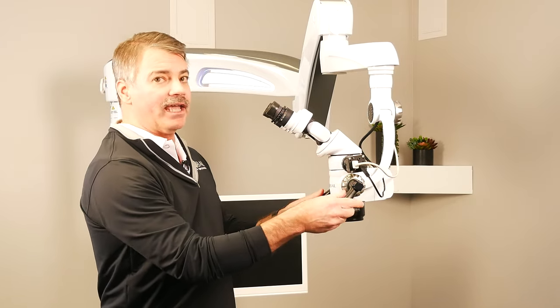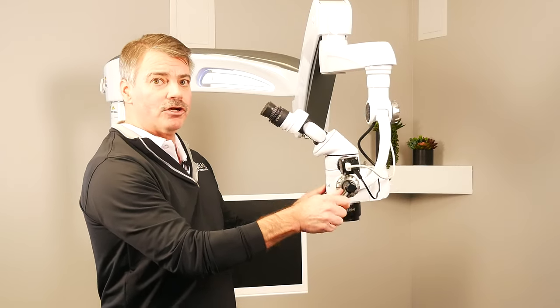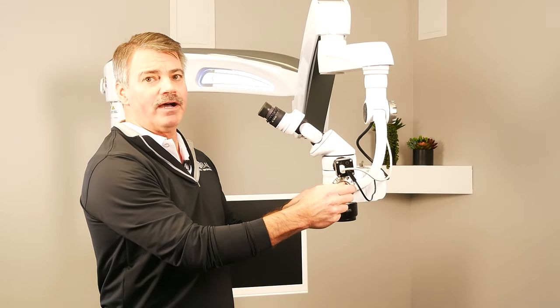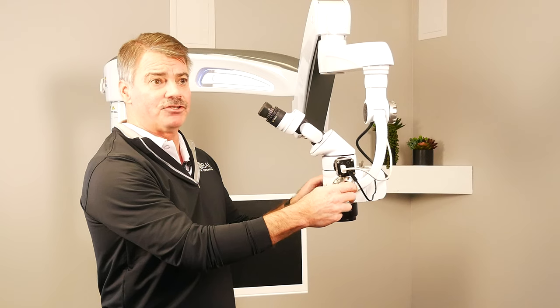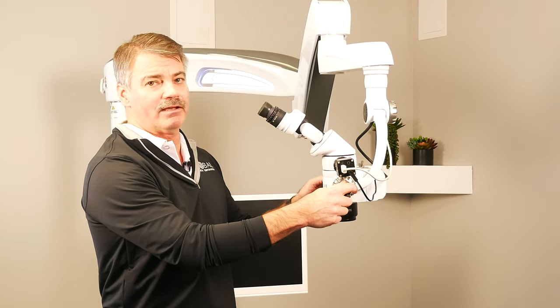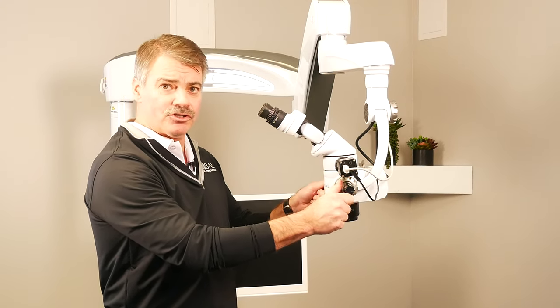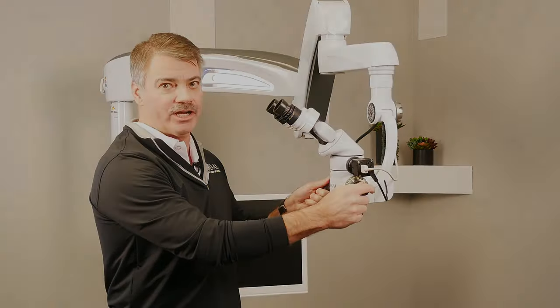If you can reach the handle, you can maneuver the microscope and intuitively find where the magnification changer is, so you can switch conveniently between low magnification to high magnification without having to search for the handles or the magnification changer.